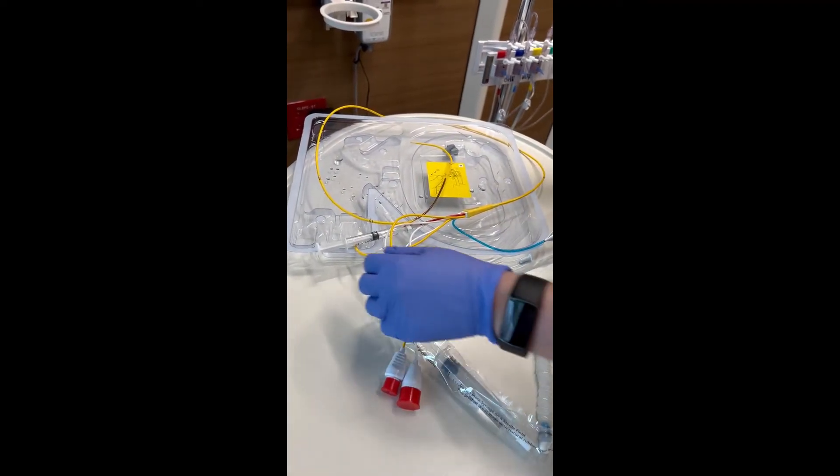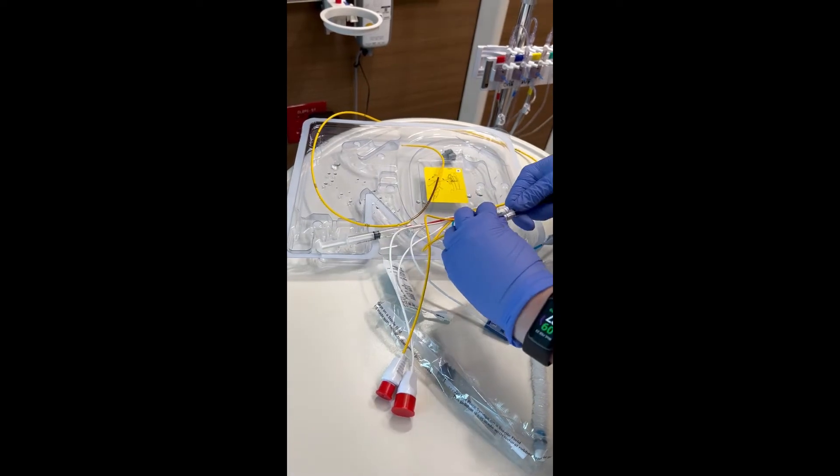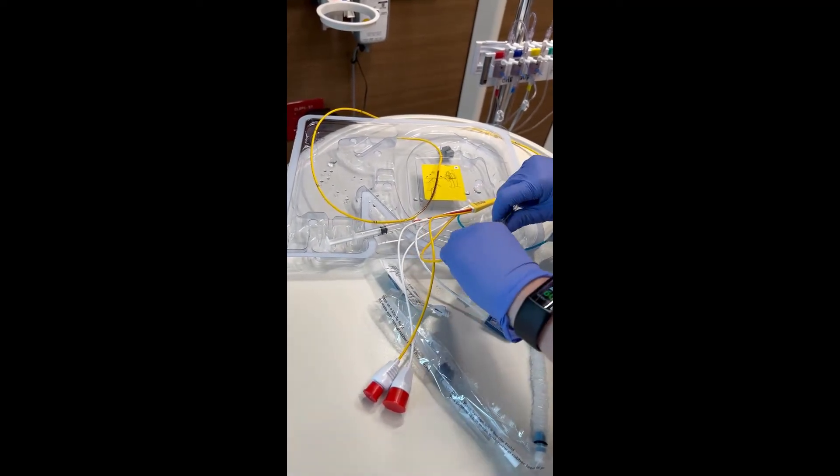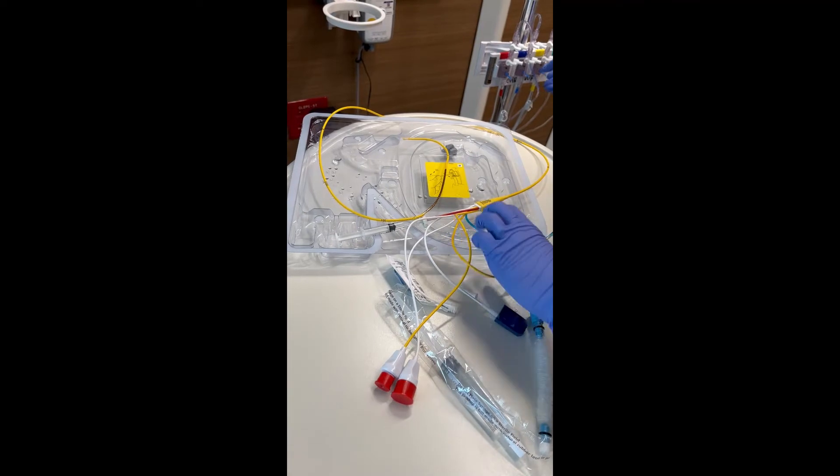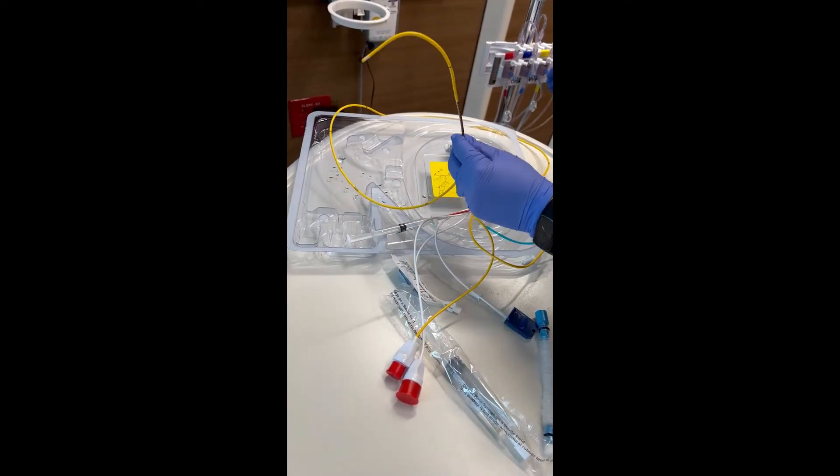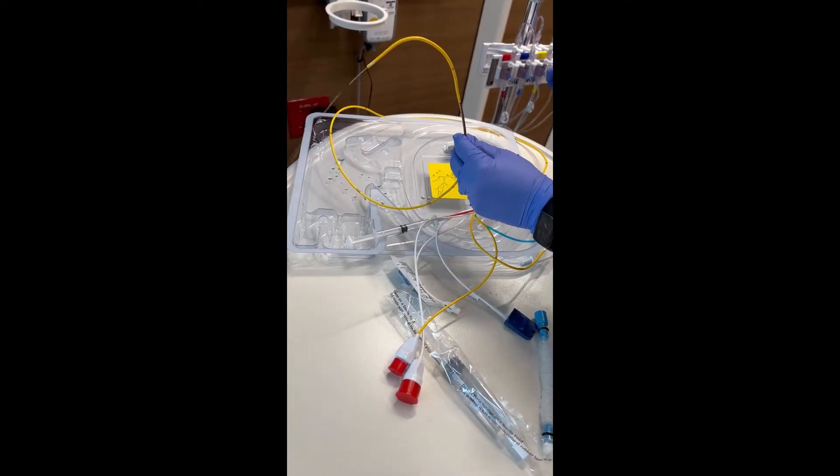We're going to hook up our PA to the PA port, flushing this out. Again, we're doing this before it goes into the patient, just so you guys can see it flushing out. There it goes.